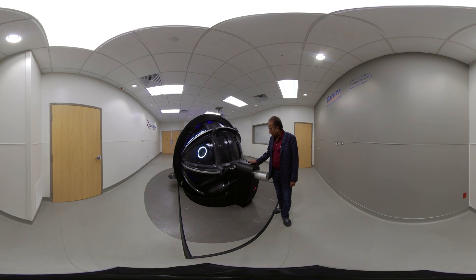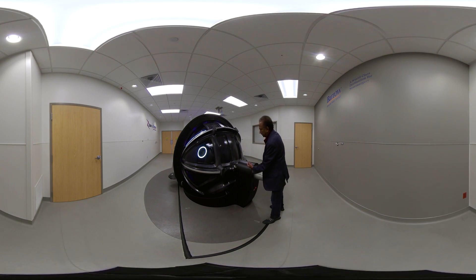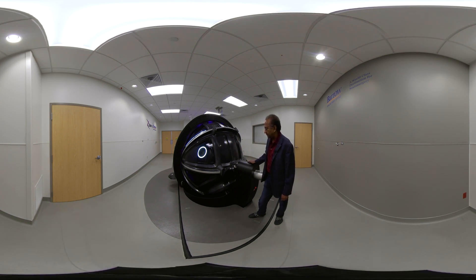Now let's look at the axial axis itself. This particular thing looks like a motor, but it's not — it's called a rotary pass-through. The cables come in through here and do not rotate, but on this side, everything rotates. What actually passes through this rotary pass-through is water, power, and data. It's amazing that we can pass something like water without any leakage. Because of this rotary pass-through, we can rotate this axis 360 degrees continuously without ever having to unwind. The same applies to the oblique axis — both axes can be rotated forever.